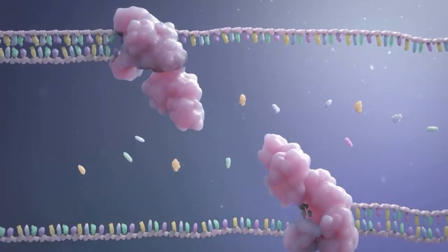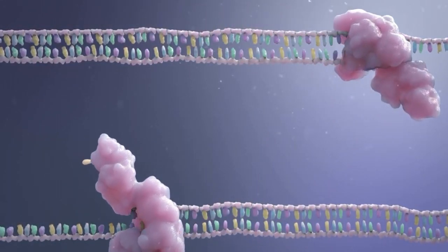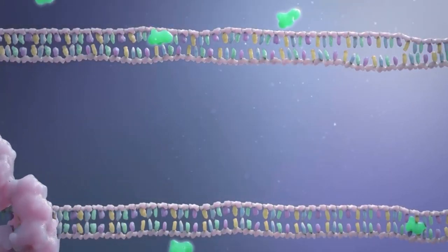Here, it is converted to cDNA then amplified and detected by RT-PCR using primers and probes to a number of targeted genes and controls ensuring highly specific and sensitive detection.